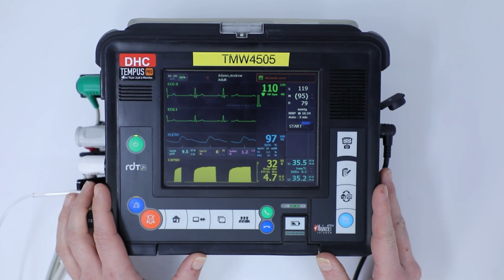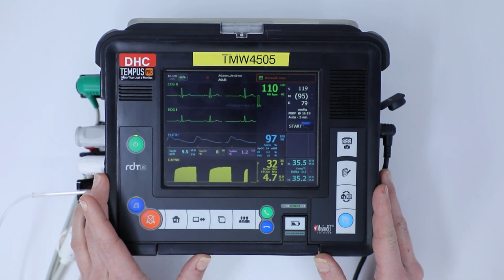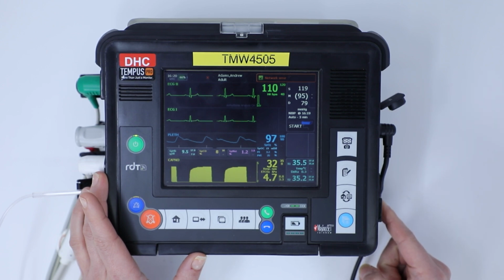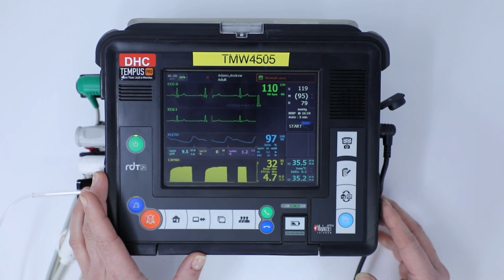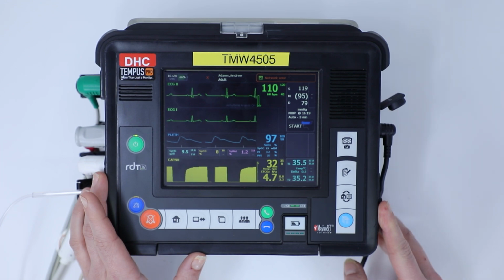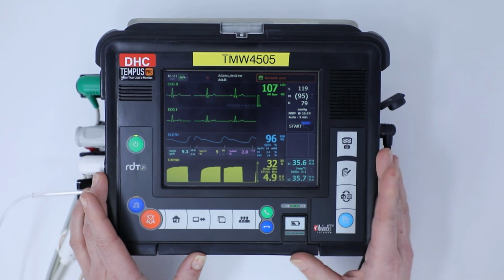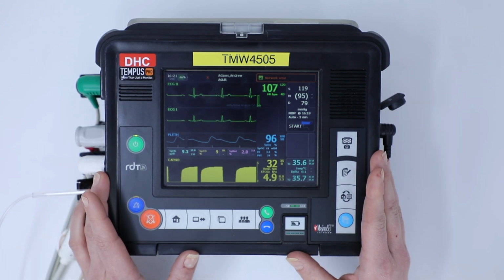Now let's look at the different ways we can send data from the Tempus Pro, which is a great functional feature on this particular bit of equipment. We can do it in a variety of different ways, including using USB memory devices, which are plugged in using the 2 ports on the right-hand side of the screen here. We can utilize an external printer, an email address, which allows us to send a patient report as a PDF or as an electronic patient care reporting system. Or we can use an internal printer, which some of these devices have built into them. It's just important to note that within defence, our reachback capability can often be affected by our area of operations or the functionality of how the equipment was procured.